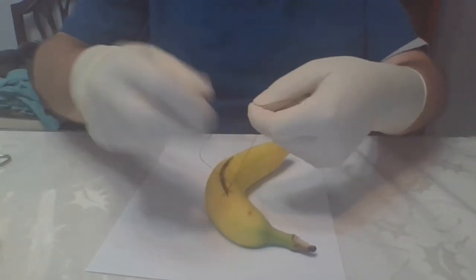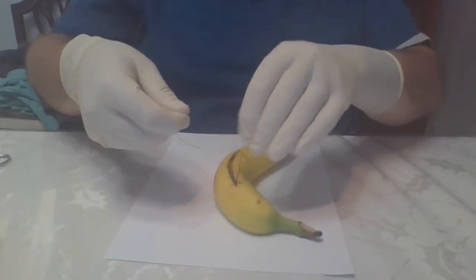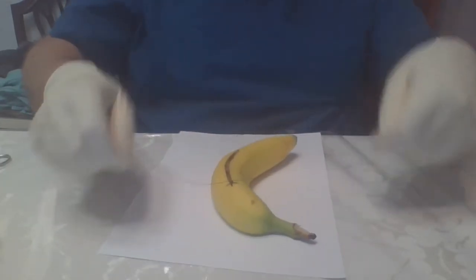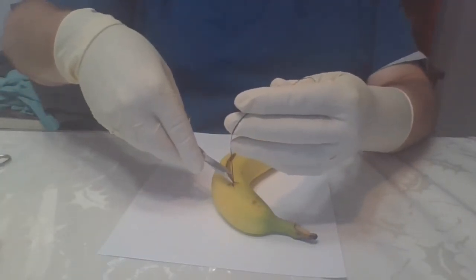I've got a little bit of an air knot there. All right, and then I'm going to load me another one.